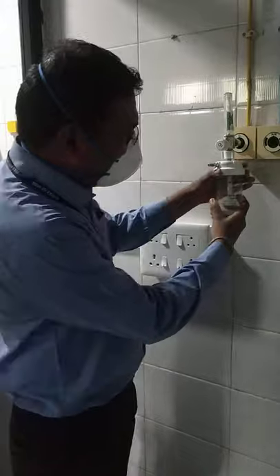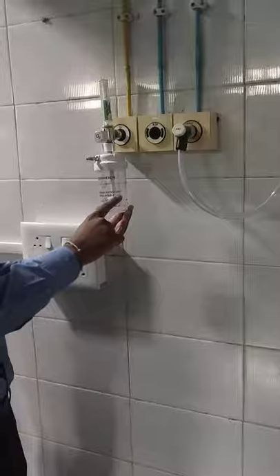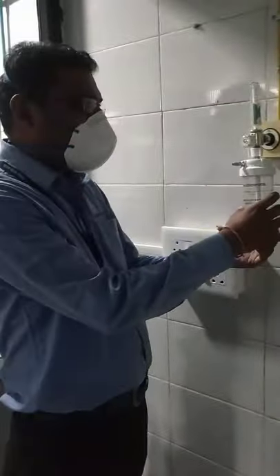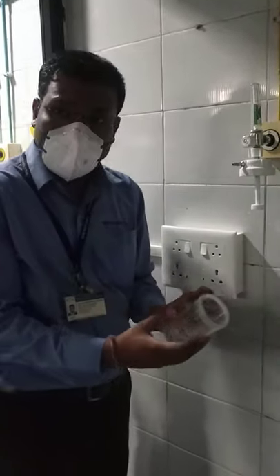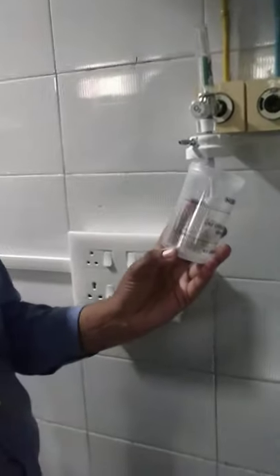On the humidifier bottle, observe this: use distilled water only. After discharge of the patient, clean this bottle properly — or you can autoclave this bottle, as it is autoclavable. It has two markings: maximum and minimum. You have to fill water only between these two levels. If water is filled beyond the maximum limit, it will go through the pipe towards the patient's nose, which is dangerous for the patient.